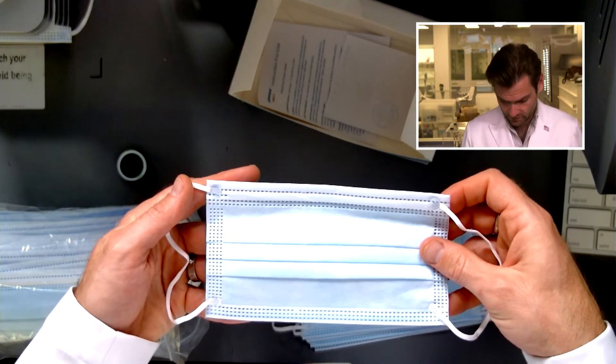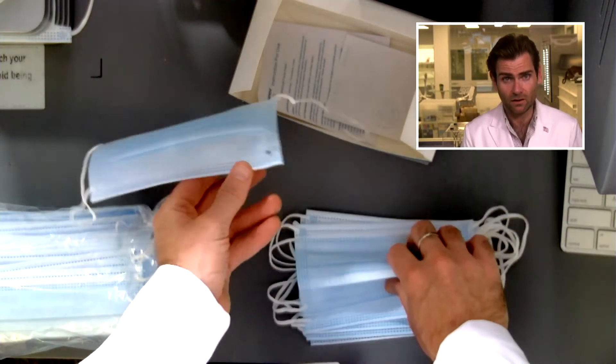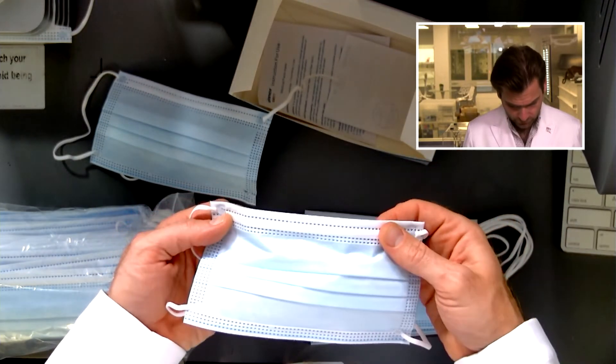It's a pretty well put together mask. It's a little sloppy — you can tell there's a little off there — but overall it's pretty good. Let's try it. Holds are good.